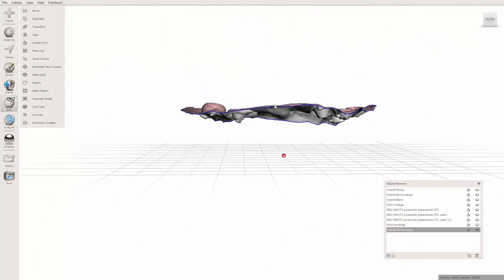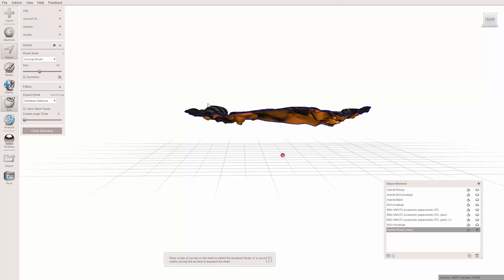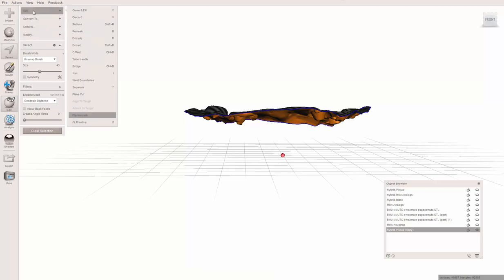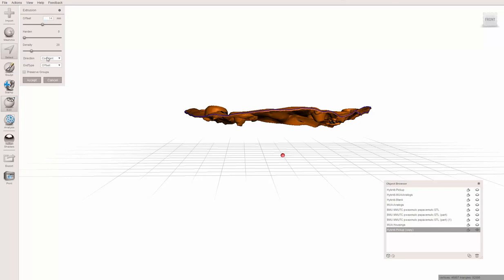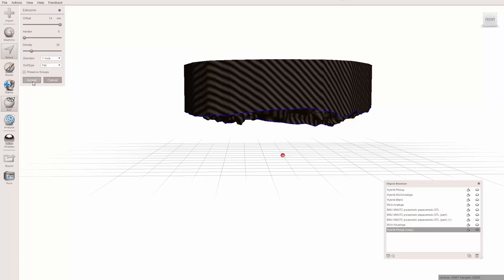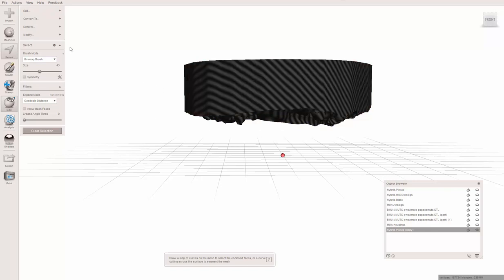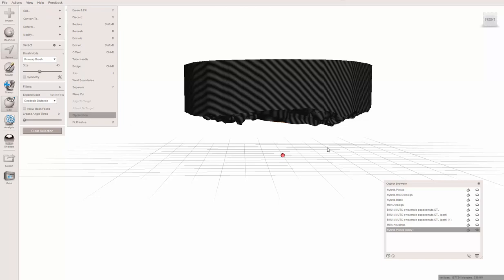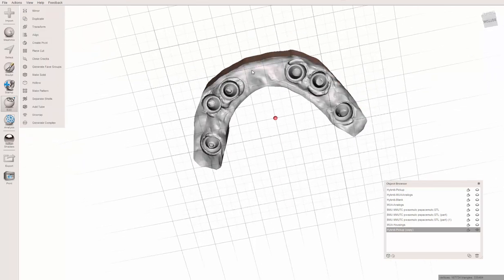I want this. Click the I to invert the selection. Now everything else is highlighted. We've got basically the underside of the denture. If I take this and say Control A, go to Edit and Flip Normals, I now have a model that looks like it should in the mouth. To make it easier to see, I'm going to pour this up by hitting Control A again to select everything.